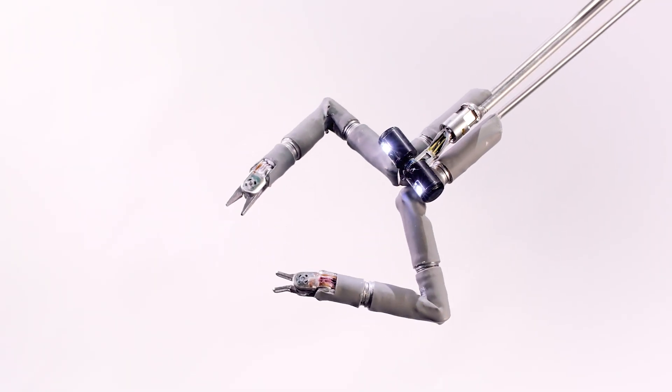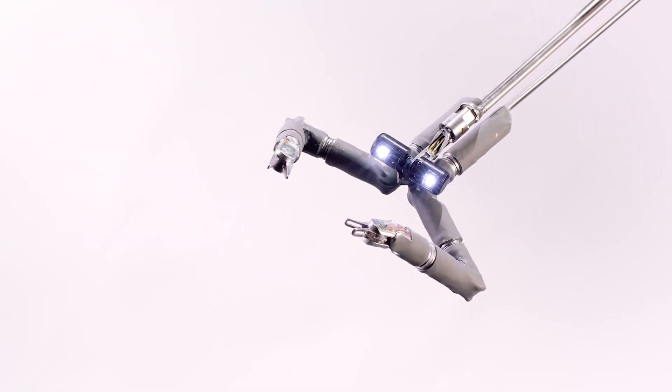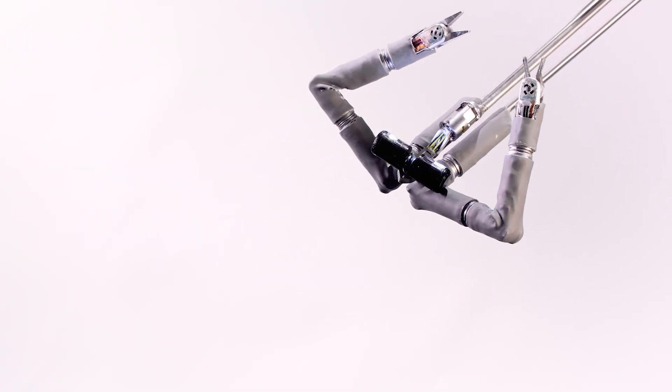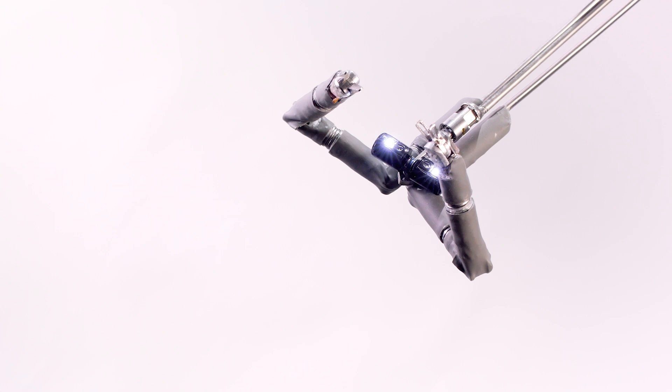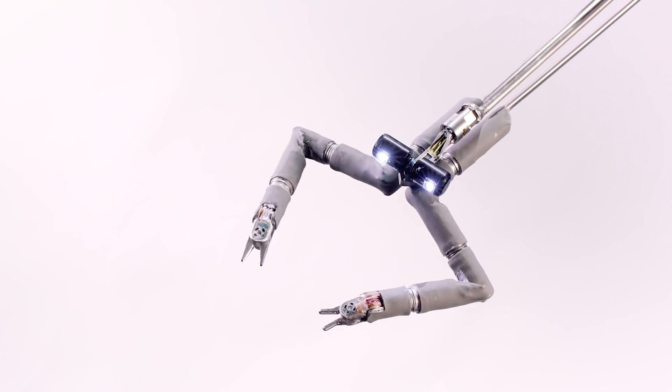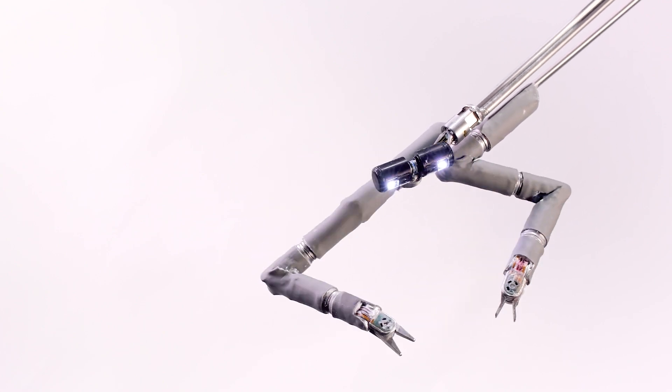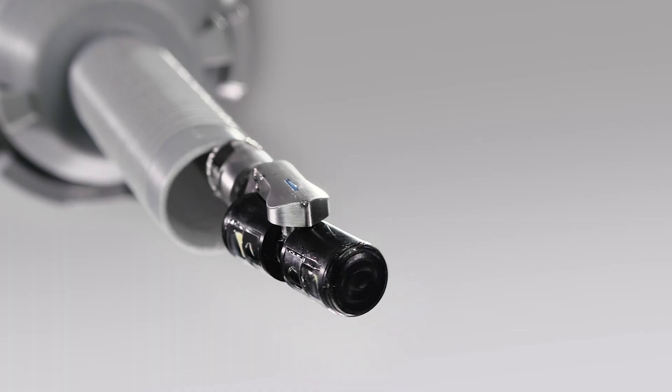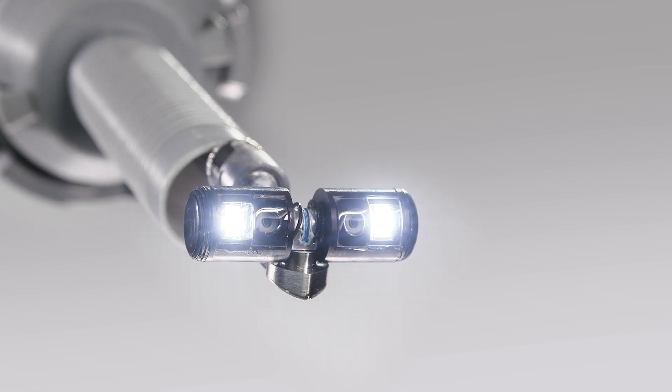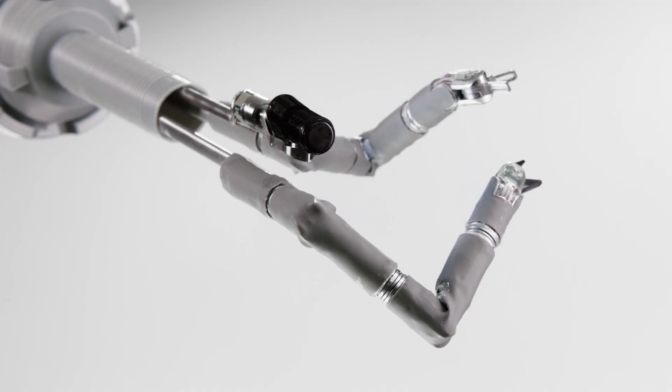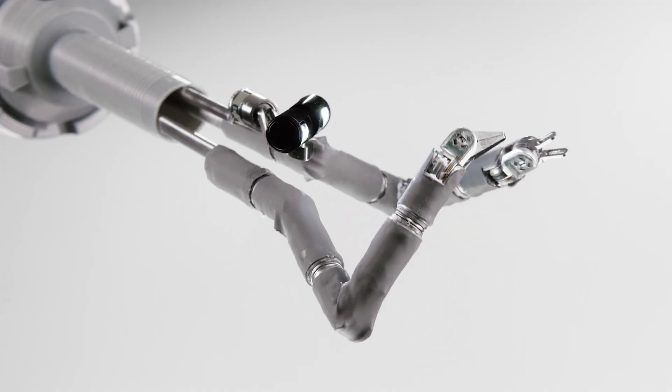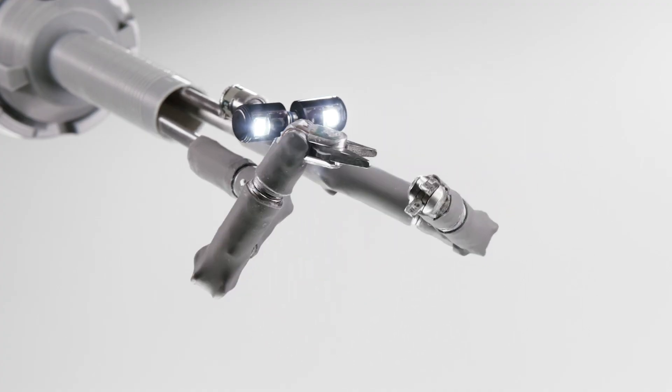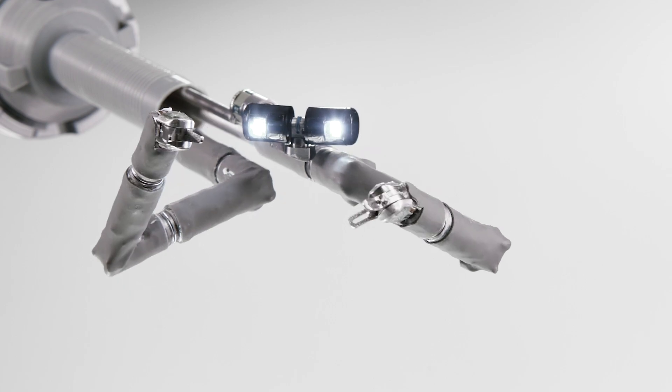The arms and camera move freely in all directions—downward, sideways, upward, and even backward—designed to give the surgeon 360 degrees of visualization and unparalleled access to critical anatomy from any entry point.